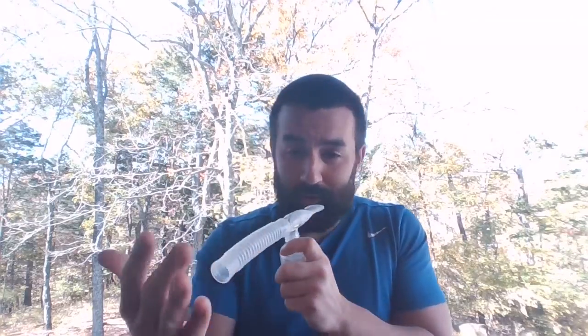You'll see people doing all sorts of weird stuff with these nebulizer setups. It's really just seal your lips, try and keep your tongue away from the opening. Nice normal breaths. If you occasionally want to take a slightly deeper than normal breath and a slight little pause, that's fine. But these are dosed where you can give it to a patient who's not able to follow commands, and as long as they're breathing, it's going to be fine. We do want them taking sufficient inspiration, so we sit them upright, try to make sure they're taking good breaths and they have their lips sealed.